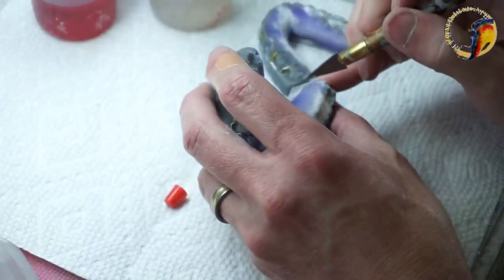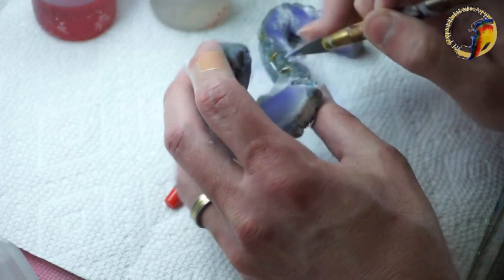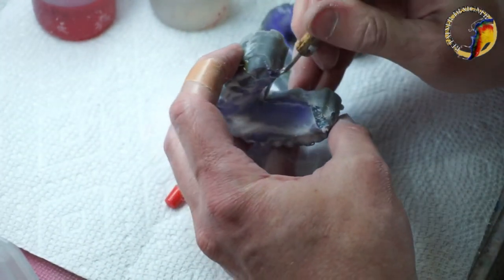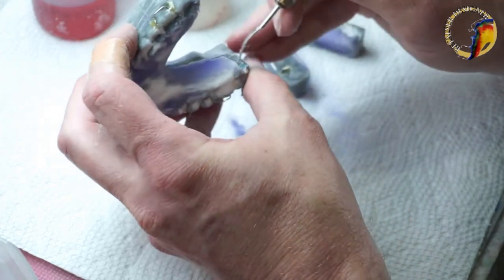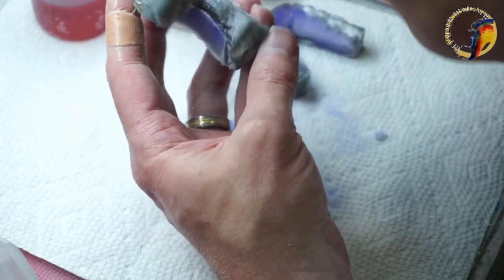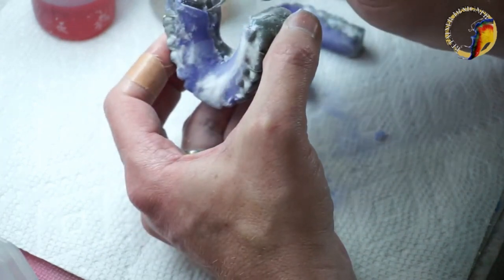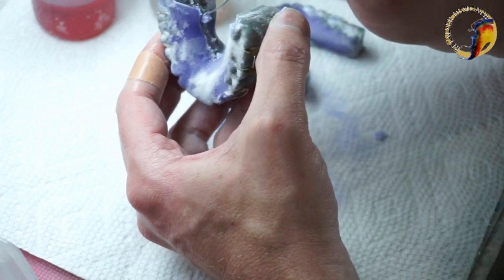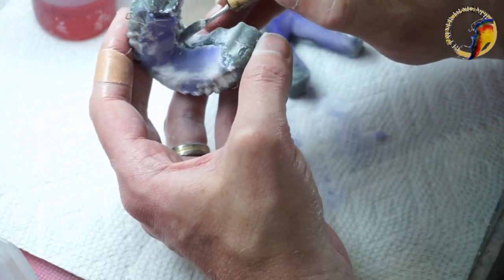Shiny is not your friend until you're polishing — you want a matte finish. I just got right into it. Sprinkling while doing multiple models is one of the bad things — don't get distracted, keep your head on a swivel. I'm just going to cut right through there and scrape away. What I'm trying to create is a nice area for my knife to get up underneath to get the acrylic off the model. I can't state this enough — you've got to be careful. If you scrape too much you're going to scrape off the separator and have raw model. Once you do this cut you cannot add any more acrylic in this area because it'll stick like crazy.